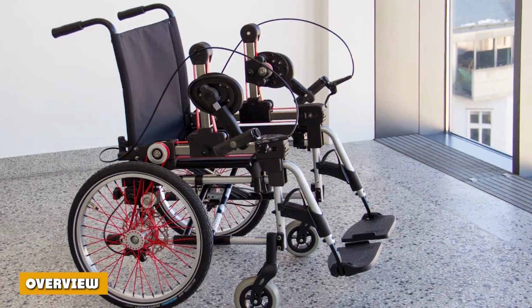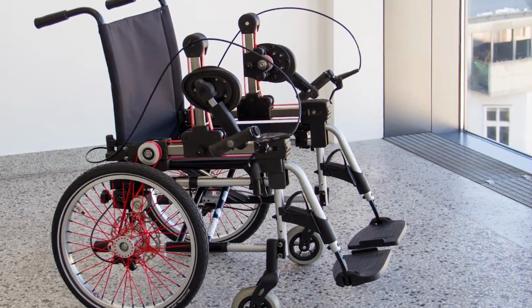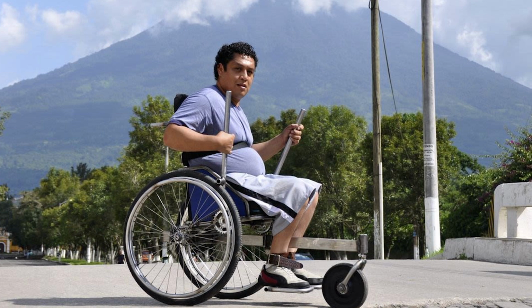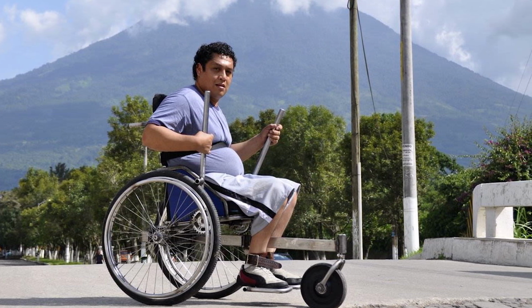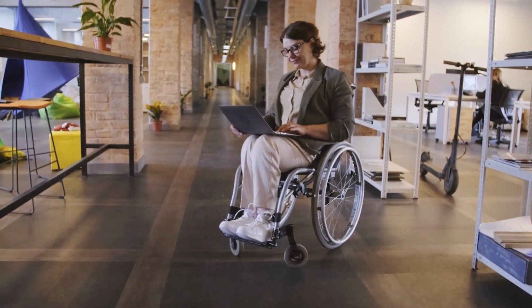Overview. Picking the right mobility chair. Whilst the above should give you a good starting point, it's always a good idea to make direct contact with a new transport chair or wheelchair before buying it. Sit down in it, get a feel for its weight, and assess how much force is needed to propel it forward. Is it appropriate for your weight and height? What kind of environments can it not be used in?